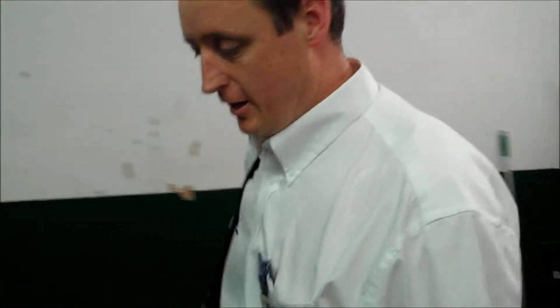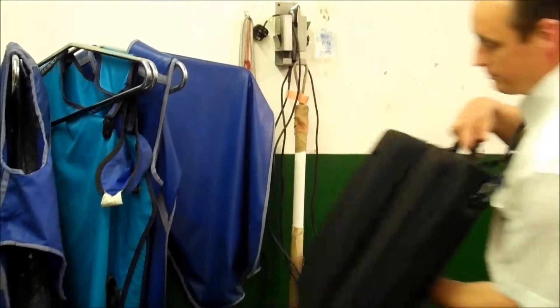Hello, my name is Craig of BCF Technology. I'm here to show you the simplicity of setting up the Quattro wireless DR system. What we'll do is we'll come over here and simply put the system on the table.